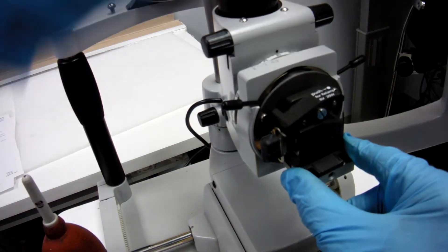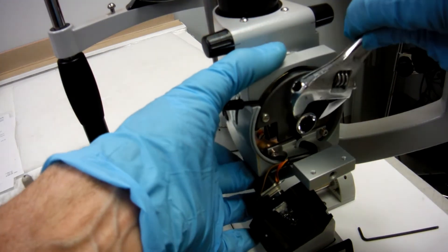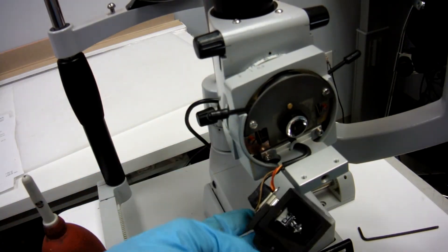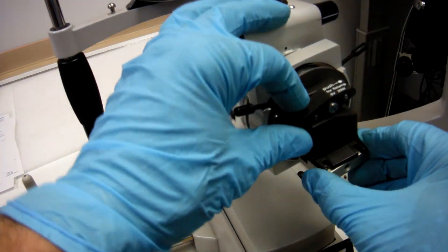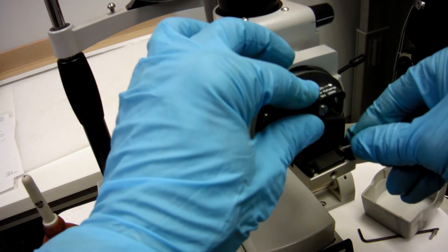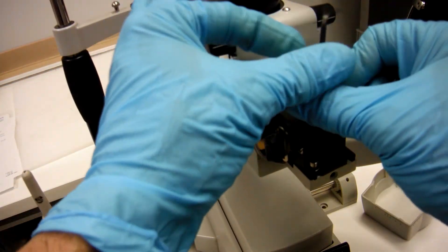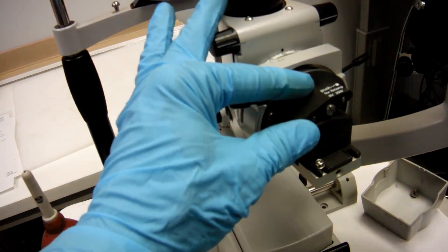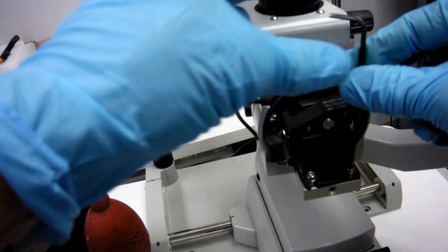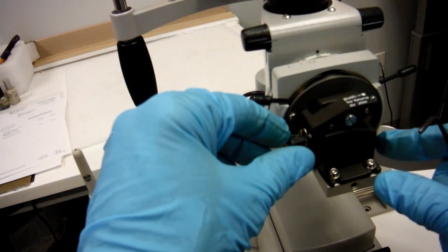If you like it, move your light assembly and tighten up your condensing lens with your crescent wrench. Then put your light assembly back on and put your two Allen screws back into your light assembly — leave them loose.